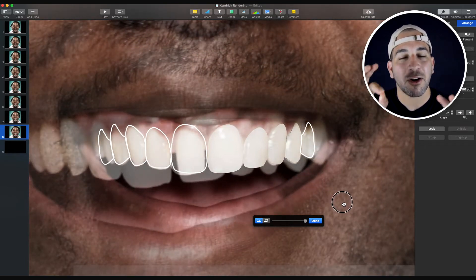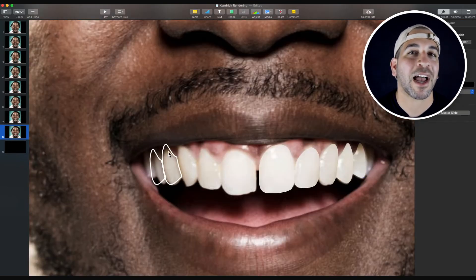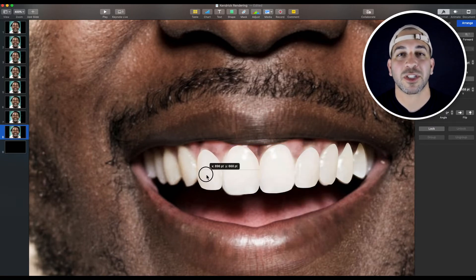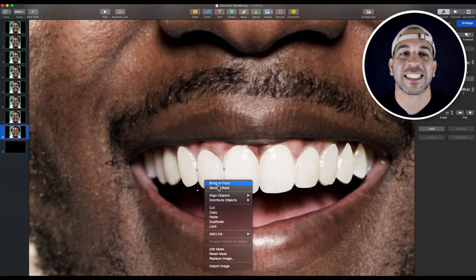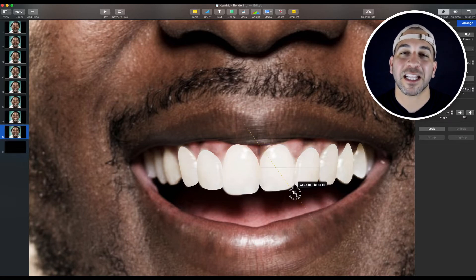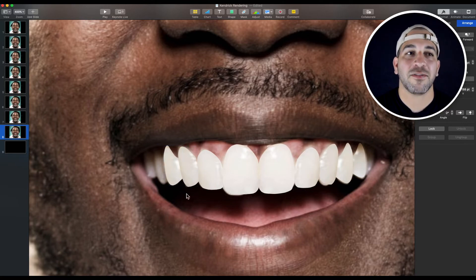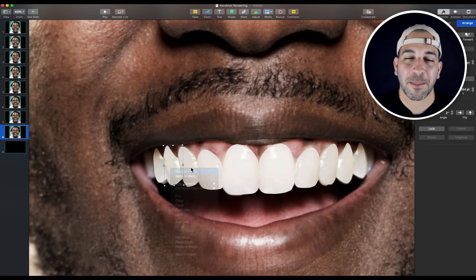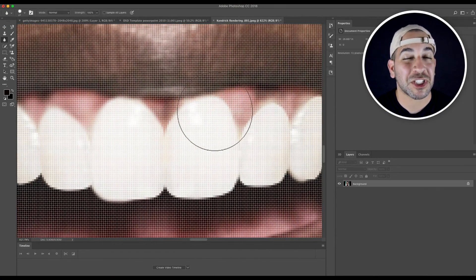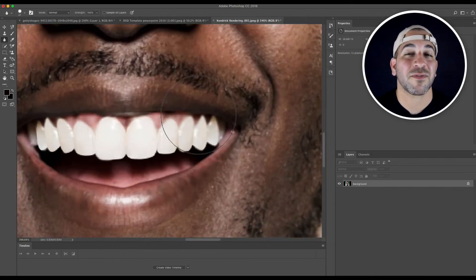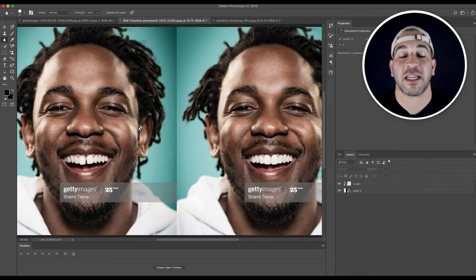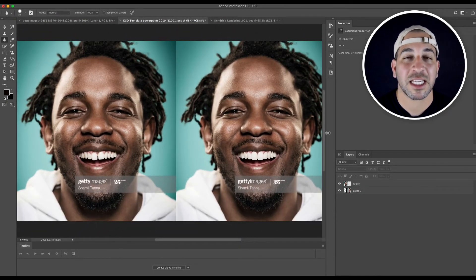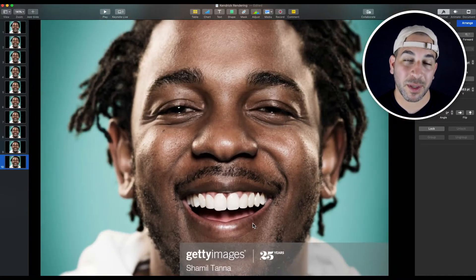And just a little caveat, Kendrick Lamar has a beautiful smile. And to be honest, I love it. It looks great. It's gorgeous. But once again, it's just a case that was so perfect for me to illustrate the concept and the technique of doing a smile design on the computer. So for the purposes of today's video, I'm not going to go into too much detail. Honestly, there's videos out there that do it way better than me. And I'll try to leave a link down below to those videos. But I am going to show you some sped up recordings of me doing the process.